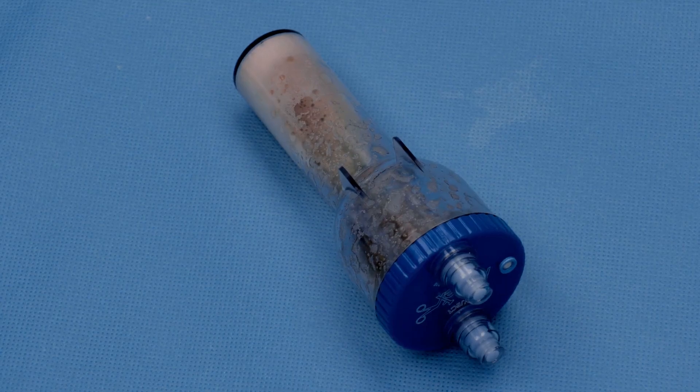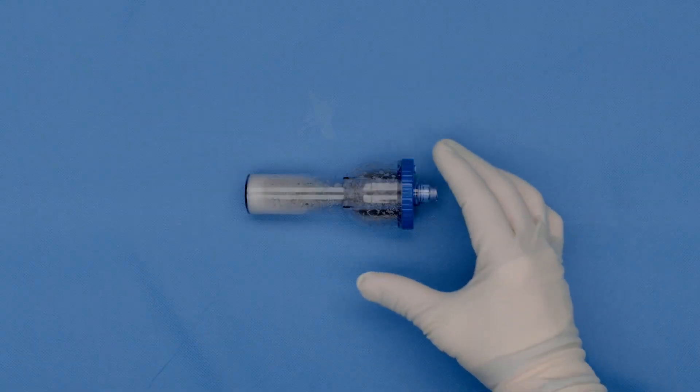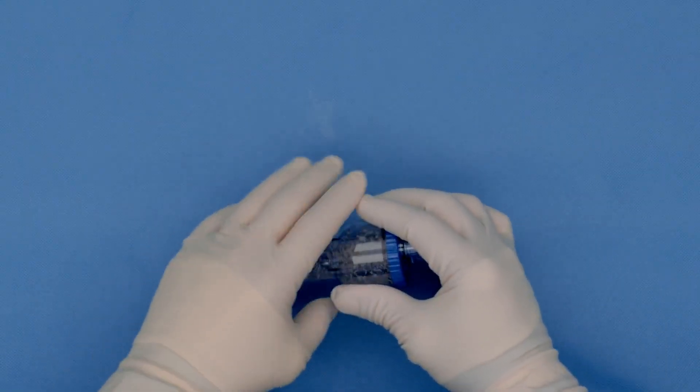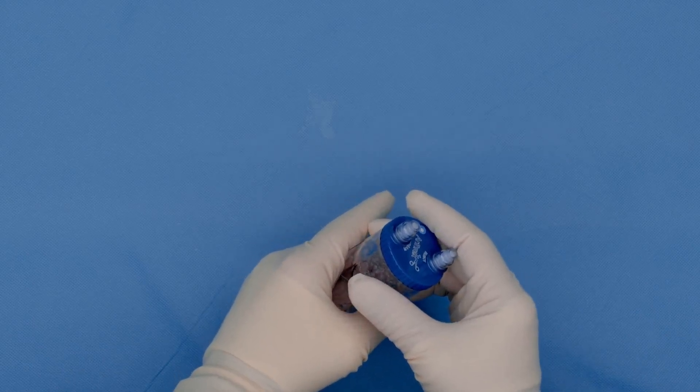And let it sit flat again with the injection site down. After one minute, gelling will have occurred and you will break the clot again while shaking the device for 5 seconds.